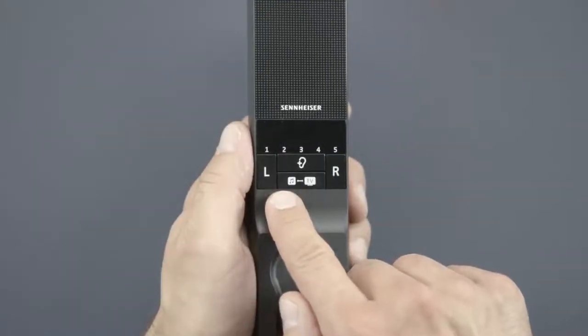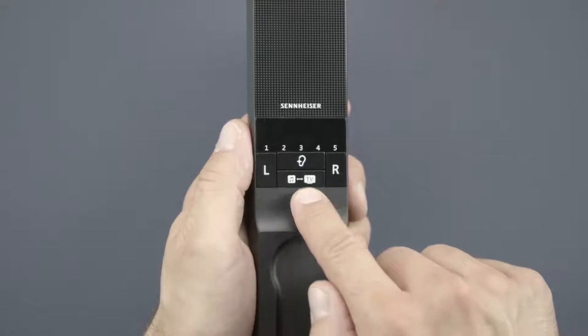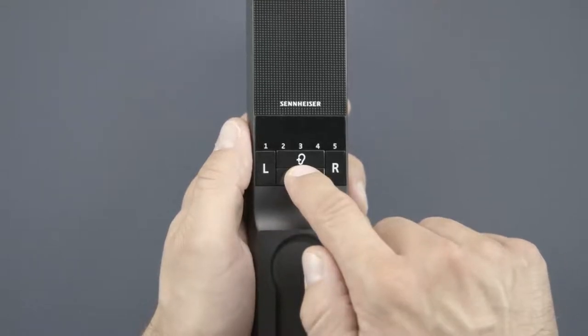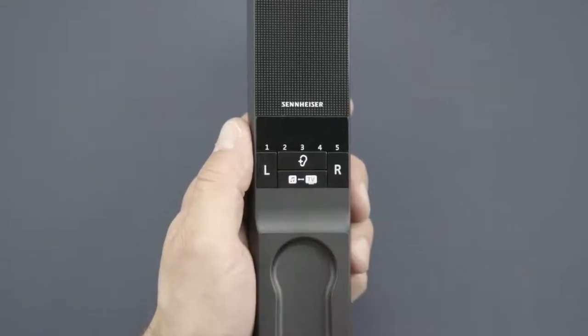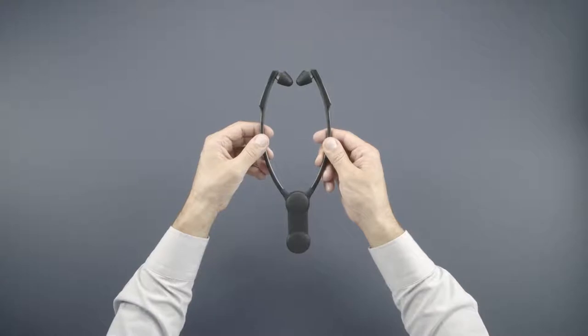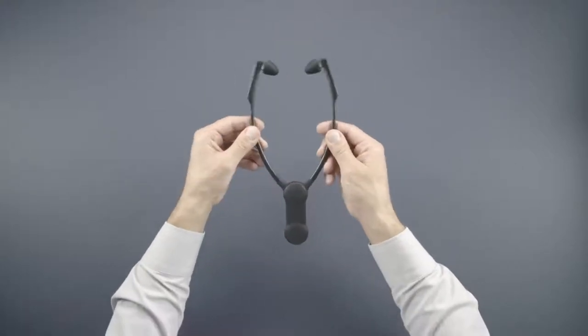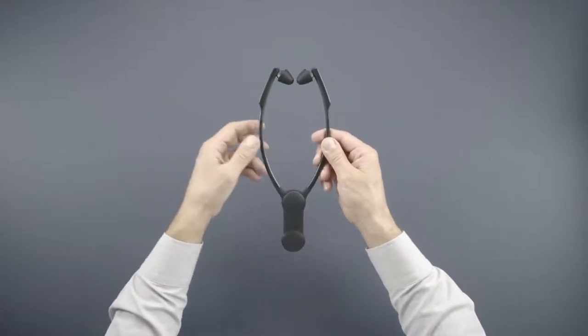Like for example the TV and the radio simultaneously. Press this button for 2 seconds to switch between the two. The headphone automatically turns on when you use it, and off again when you put it down.